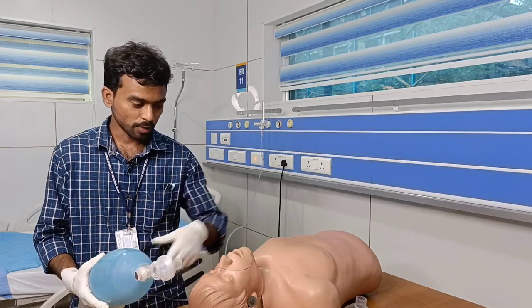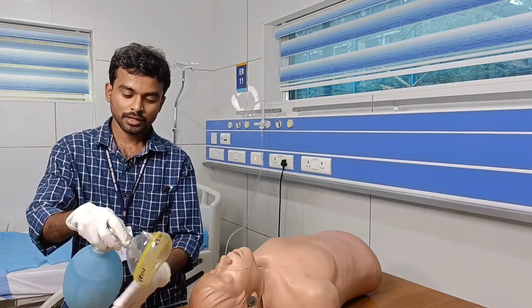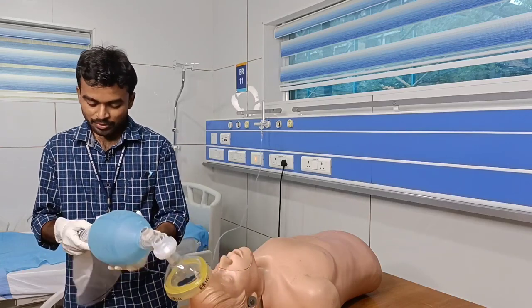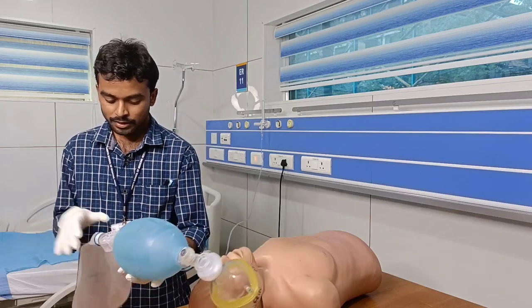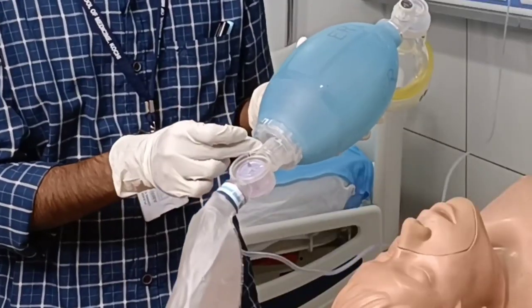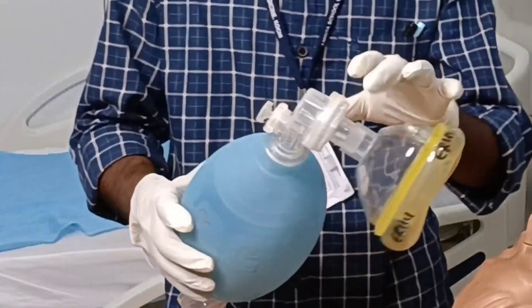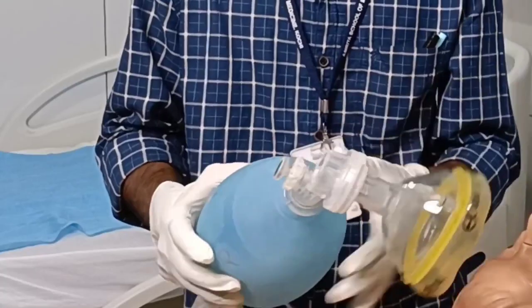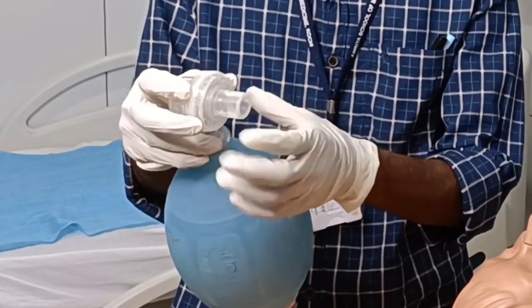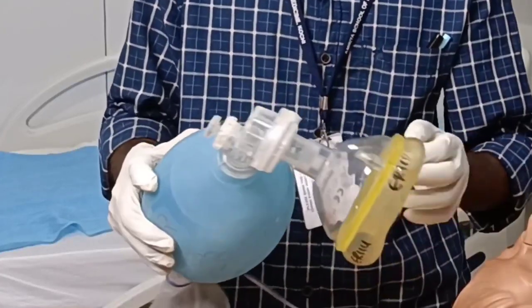The components of the AMBU bag: there is an outlet end that connects to the patient, and an inlet end. The bag has a reservoir bag, an oxygen connector, and an oxygen inlet valve inside. This is the self-inflating bag or manual resuscitator. There are two valves: the APL valve (pressure releasing valve), and inside, a fish mouth valve — named because it looks like a fish mouth. The face mask is kept on the patient's face for ventilation.